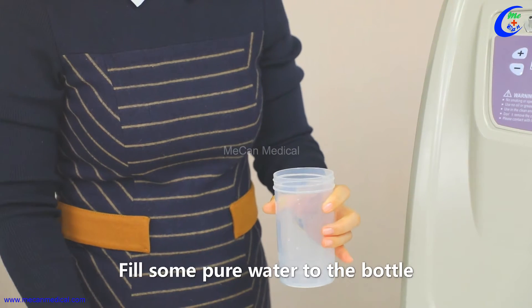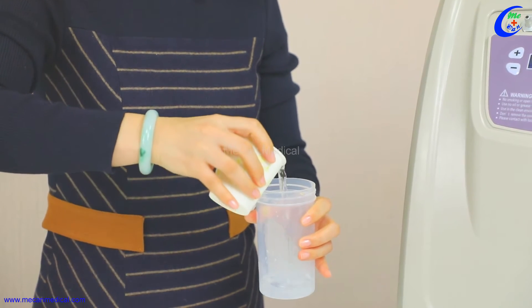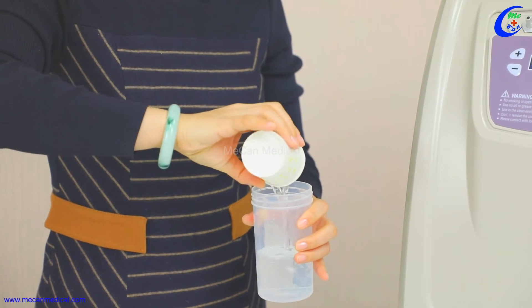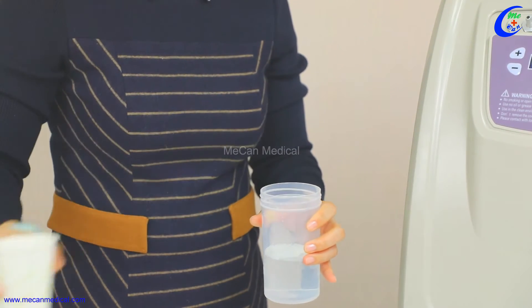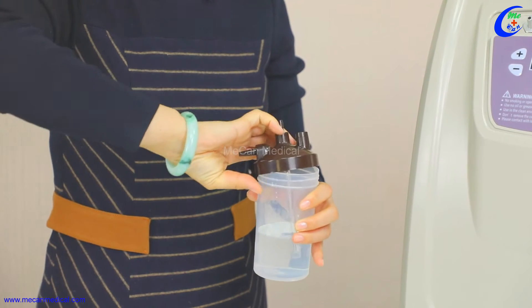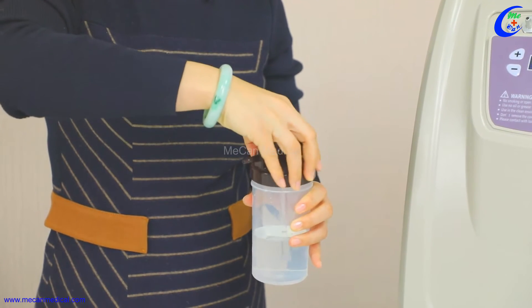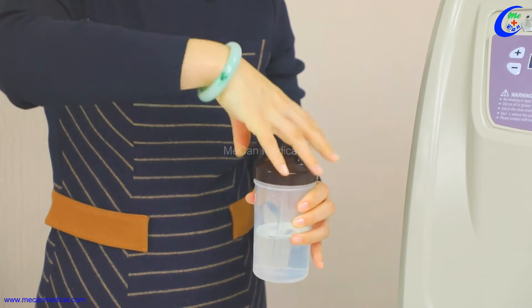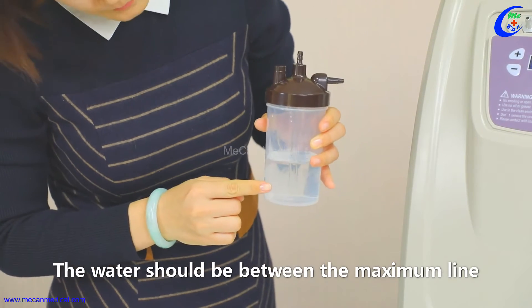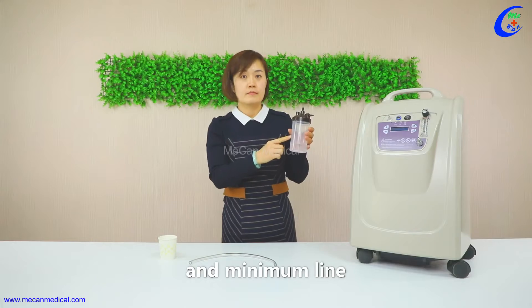Fill some pure water into the bottle. The water level should be between the maximum line and the minimum line.